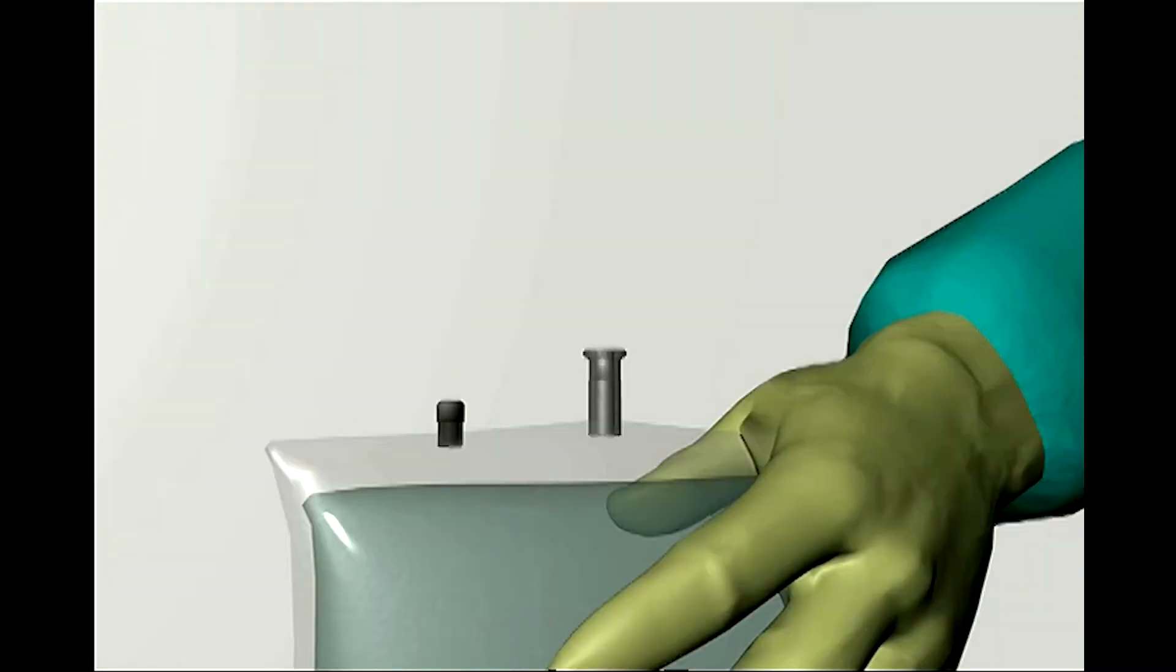Step 3: De-air the IV bag and prime the TruWave system. Step 4: Invert the normal saline IV bag so air raises to the base of the bag. Anticoagulation per institutional policy.